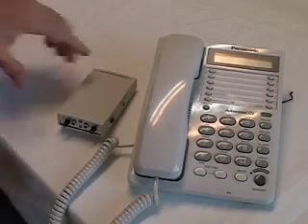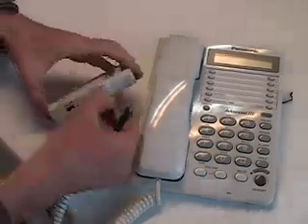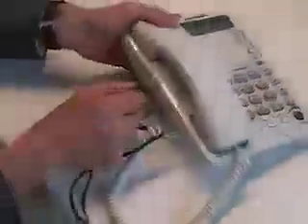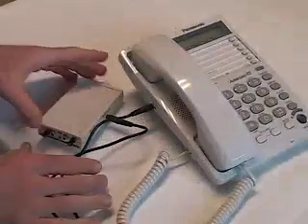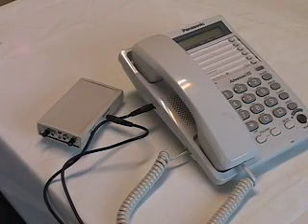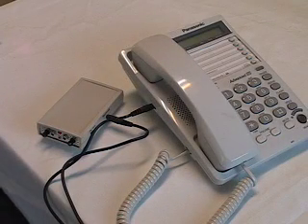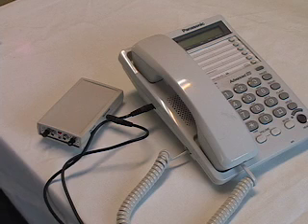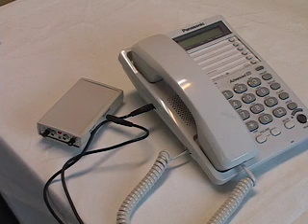The Telephone Fluency system plugs into telephones that have a headset jack. Cordless phones and cell phones have headset jacks. Some corded phones have headset jacks and some corded phones don't have headset jacks.